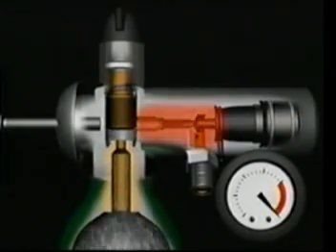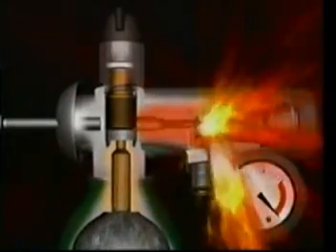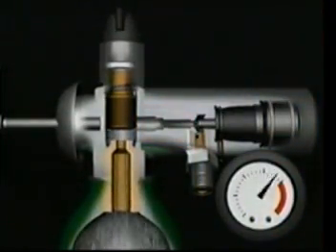As the gas rapidly compresses in this closed compartment, heat is generated, which can also ignite any non-metallic part of the regulator.